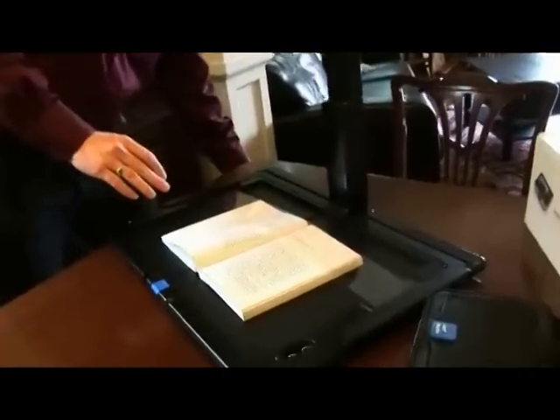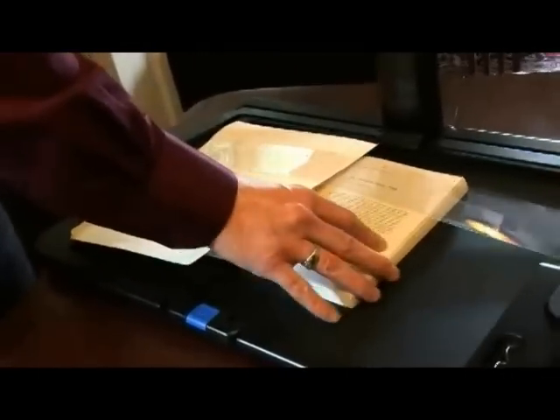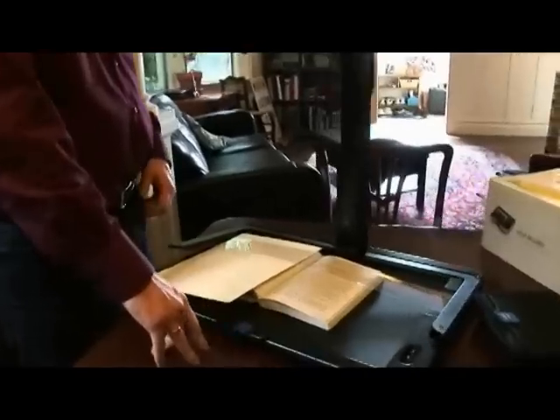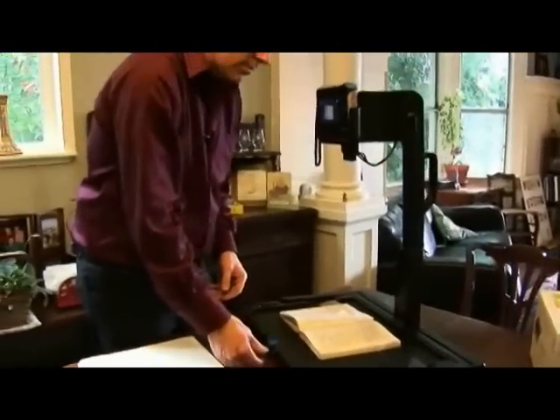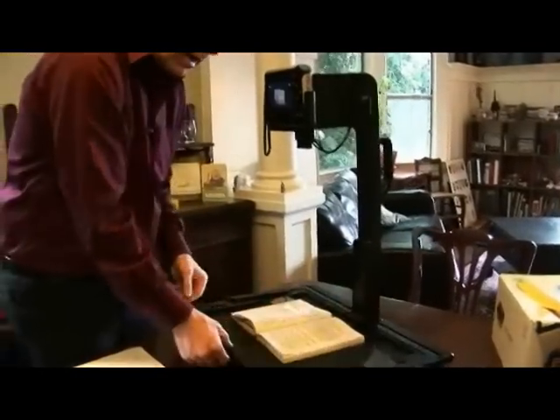What I like to do is capture one chapter at a time, making it a separate file within the reader. You can do that by going into shoot mode, capturing a chapter, exiting shoot mode and coming back into it, then proceeding with the next chapter. I don't want this first page, so I'm going to lay a manila folder down over it so the reader can't see that content. I also position the book in a fairly central place in the device so it can find it easily. I press the shoot button once to enter shoot mode, and then it will focus and capture when I push the button again. You can see how quickly I can get through one chapter, capturing two pages at once, so you're getting a lot of content in there all at one time.